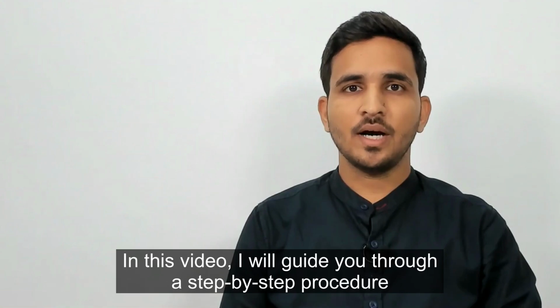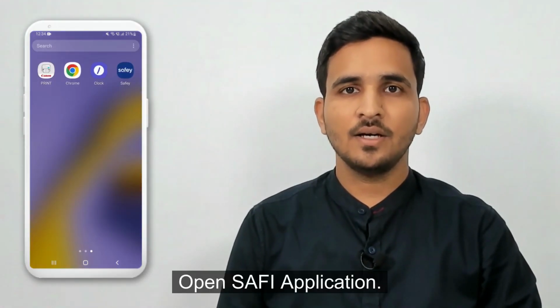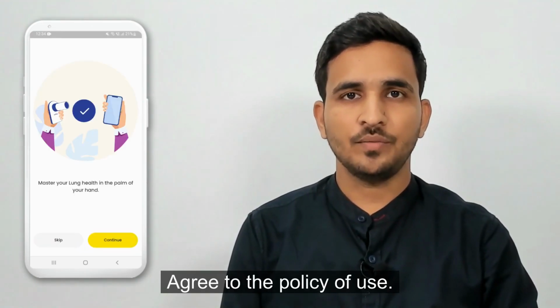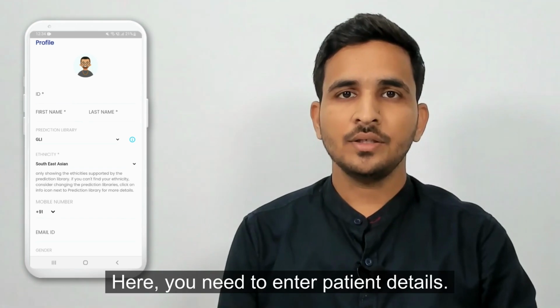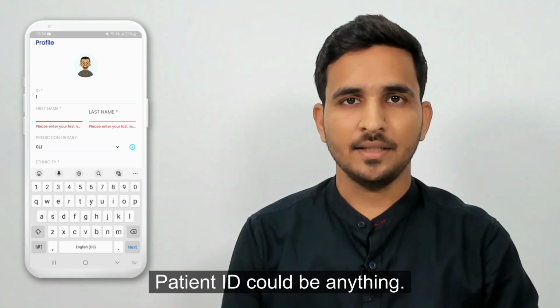In this video, I will guide you through a step-by-step procedure of using our application. Let's get started. Open Safey application. Agree to the policy of use. Here you need to enter patient details. Patient ID could be anything.